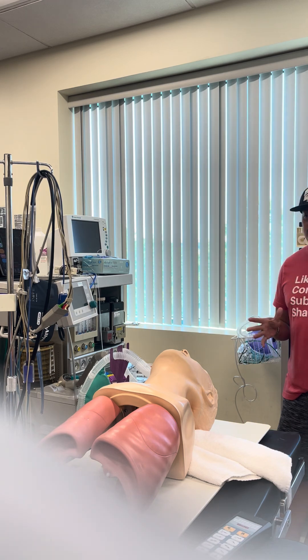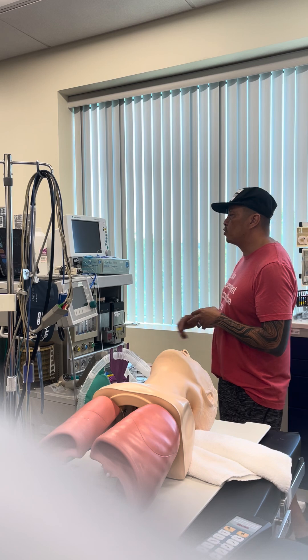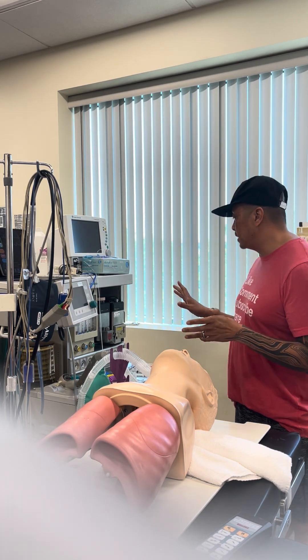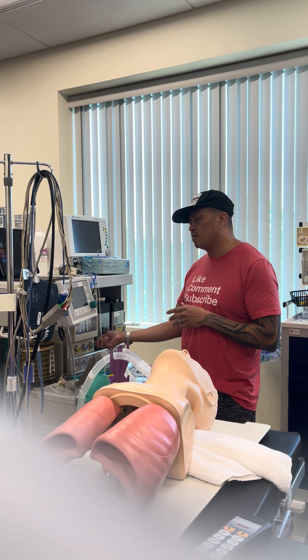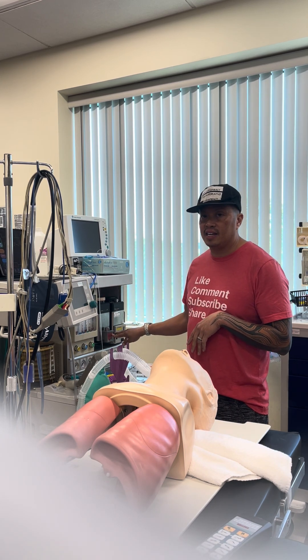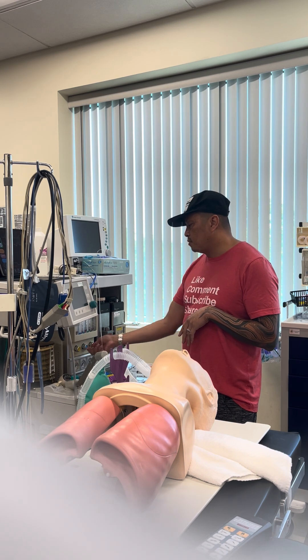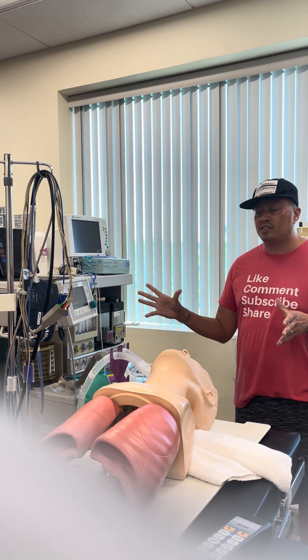Now I'm going to step back and check to see if there's anything else. This patient is having a lap chole, so I'm going to bring in a peripheral nerve stimulator as well as a Bear Hugger. And that'll do it for my equipment. Now I have my machine — I'm just going to do a first sweep, make sure my oxygen is working. All my vaporizers are off, I have enough volatile anesthetics, and I have enough O2. I'm going to turn off all my flow meters, I have my APL valve open, I'm on bag mode, and my machines and monitors are ready. I'm ready to take in this patient.